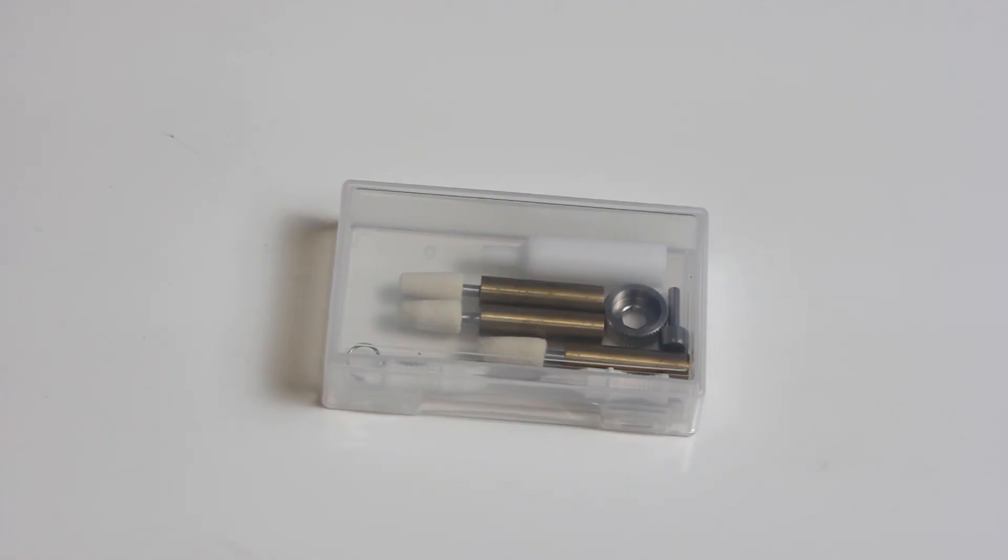Collet maintenance is a daily procedure for the DWX-42W wet mill. It is important to keep the collet maintenance accessories in the small storage case and the storage case near the mill. Use the storage shelf to keep the collet maintenance kit in a safe place.